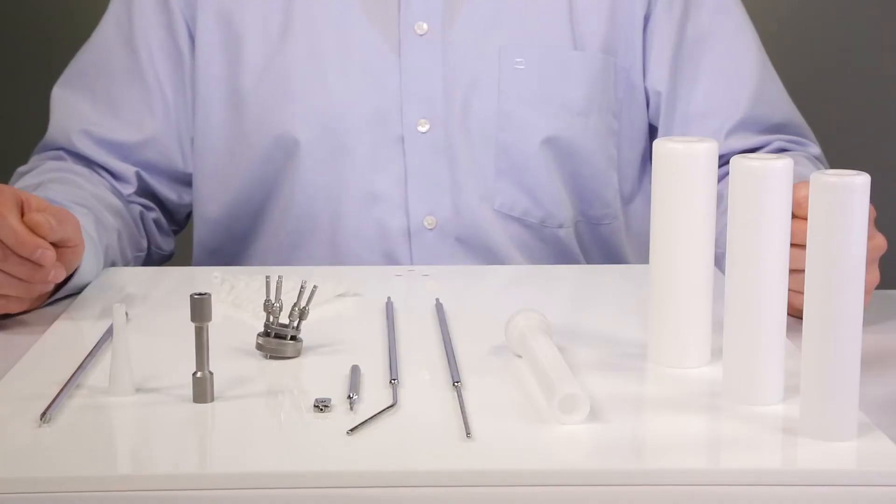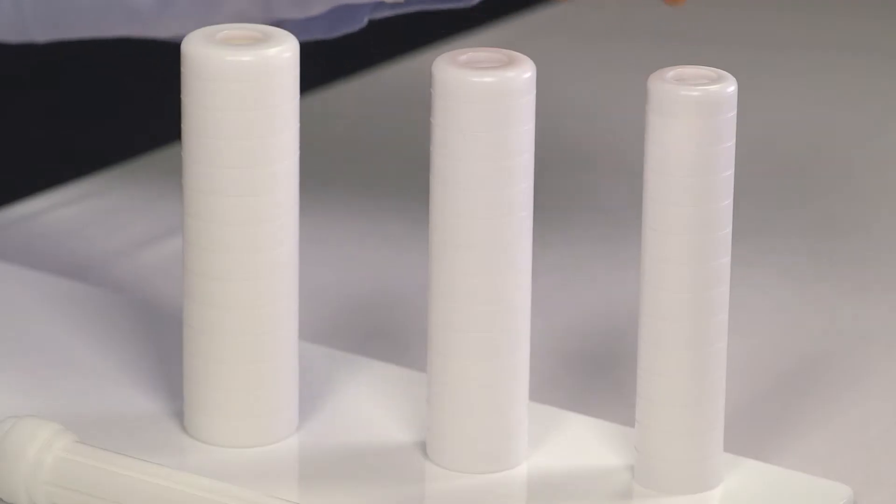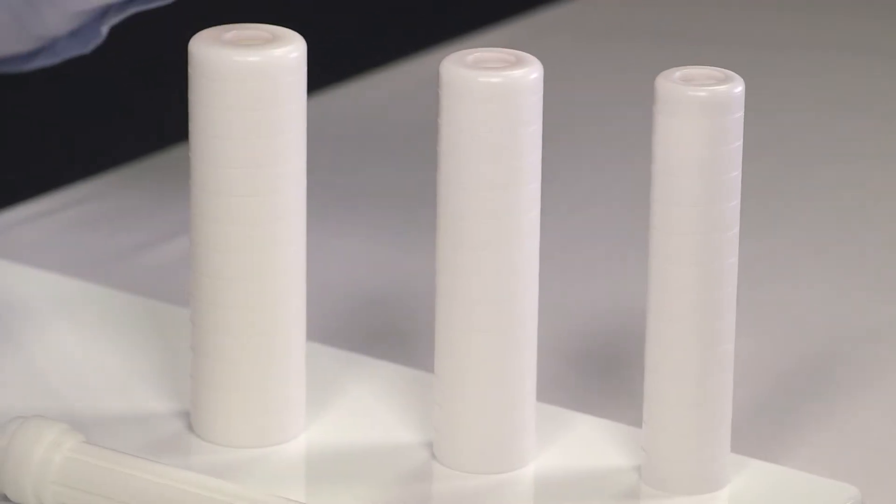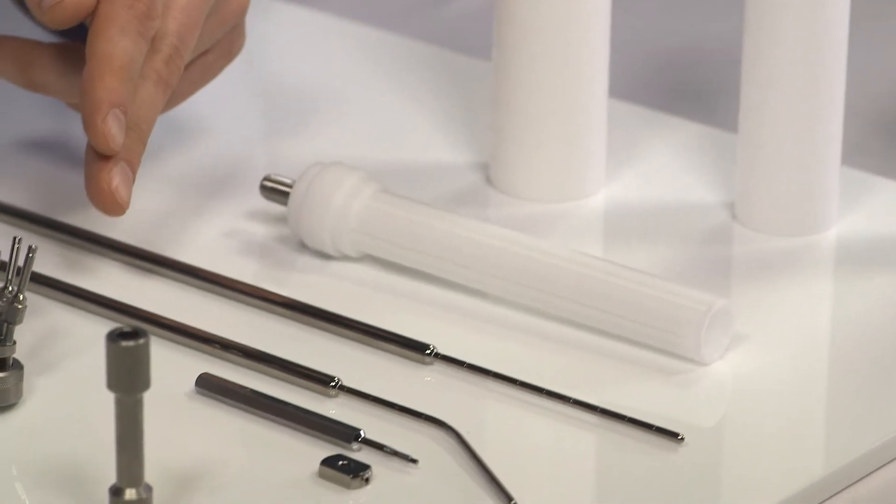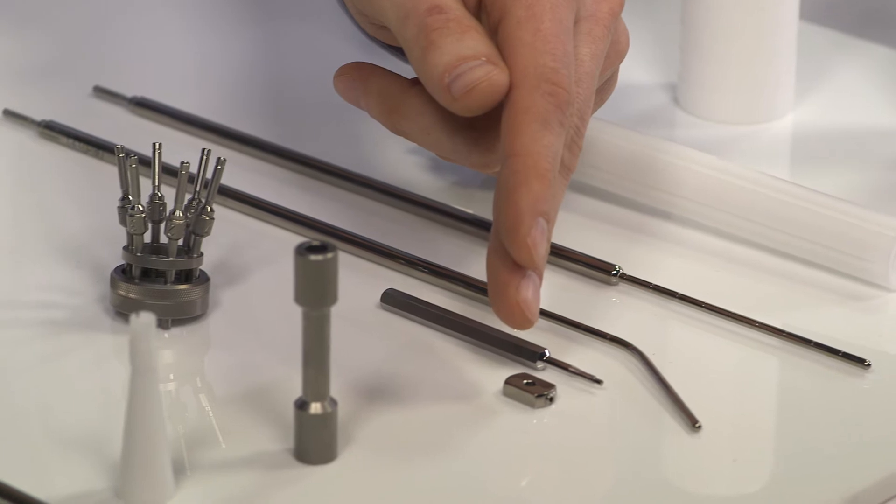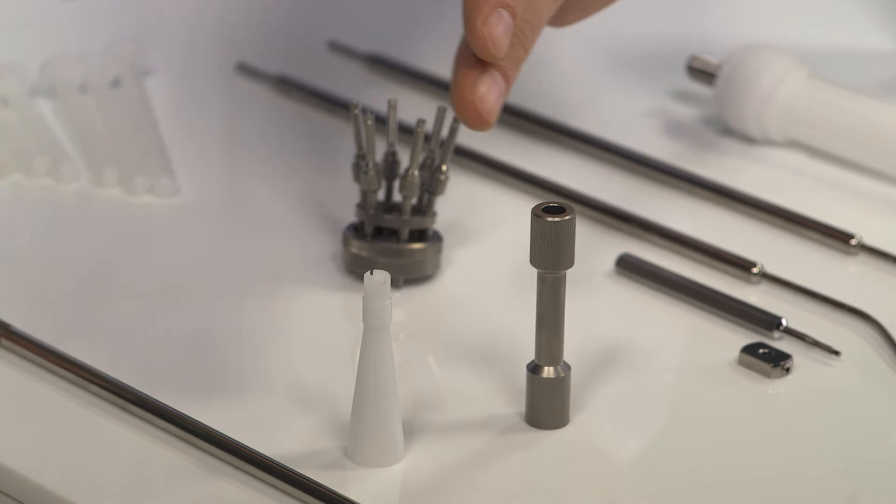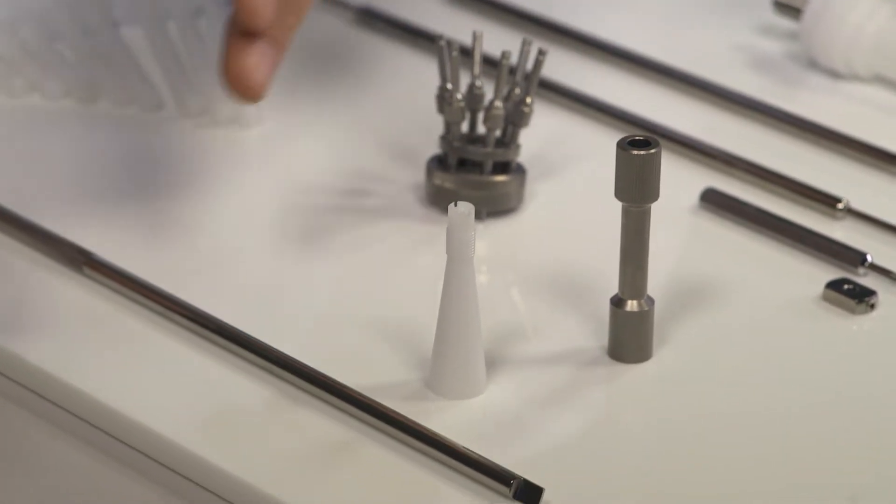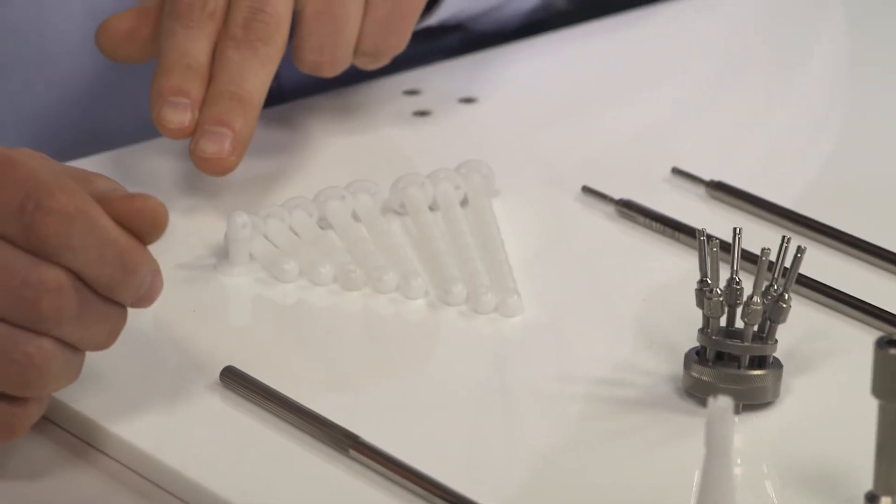The set consists of the following items: build-up caps in three different diameters - 3, 3.5, and 4 centimeters; an applicator body; two different intrauterine tubes; a cervical stop and an Allen wrench; a docking unit and a tandem lock-knob; a stump-plug and a stump-plug insertion tool. The mid-sleeves are available as optional items.